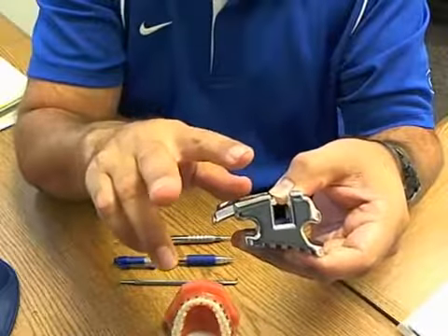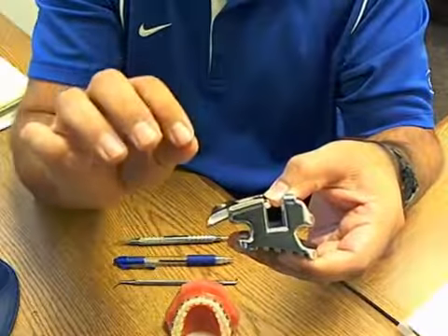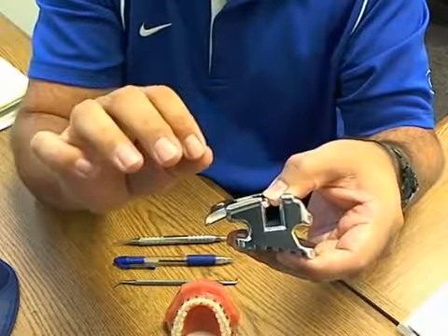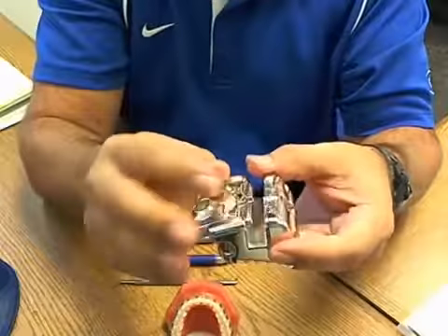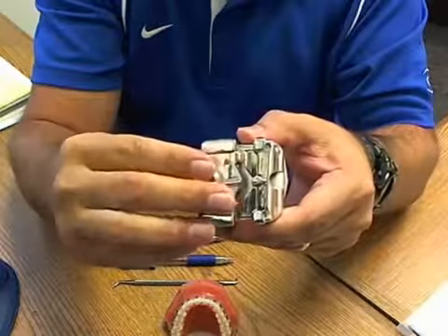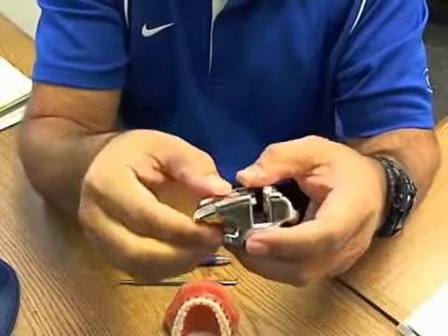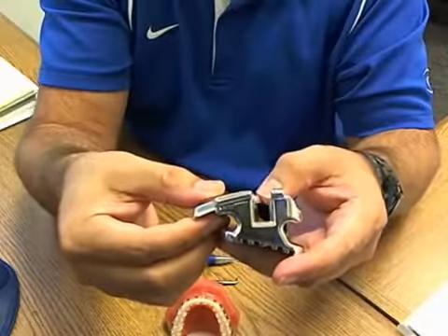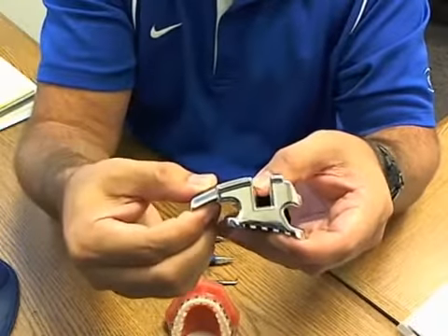Two things you can remind the doctor and staff: one, they're going to hear it close and hear it in the open position because of the speed bump underneath the door, and they'll also feel it. As the door slides in the closed position over the lollipop right here, they're going to feel it click and hear it. Same with the opening motion — there's the speed bump, and when it reaches the fully open position they'll feel it go over that speed bump and hear it.